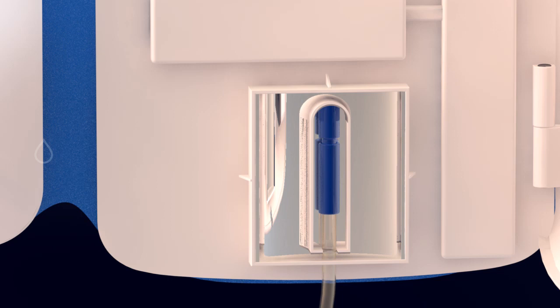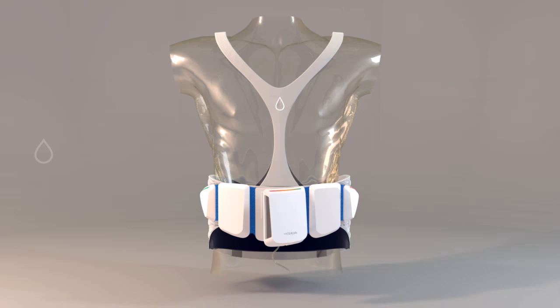The catheter is inserted into the provided rail and then fixed in place by closing the lid. This initiates the sterile connection between the catheter and the device.